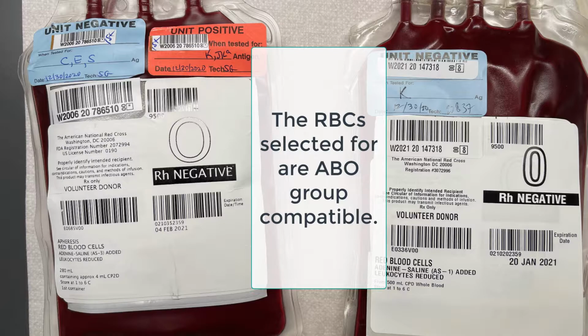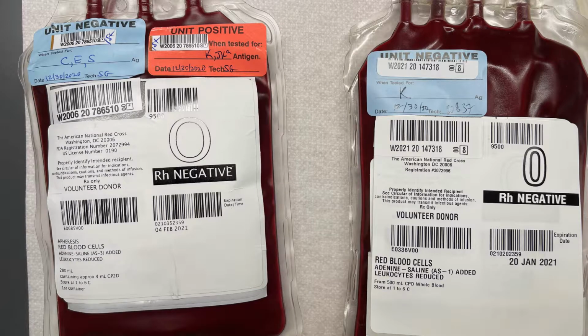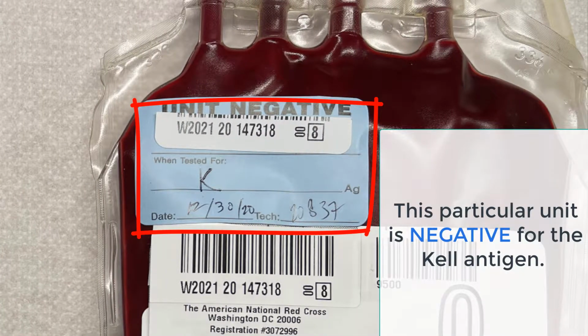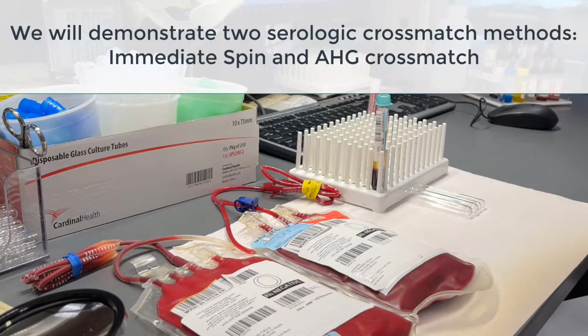Since our patient has anti-KEL, it is important to select a red cell unit that has been serologically tested for the KEL antigen, which has already been performed with these two units. One unit tested negative for KEL, while one tested positive. Ordinarily, the KEL positive unit would not be selected for crossmatch. For this demonstration, however, it is important to see how the selection criteria impacts the serological crossmatch.